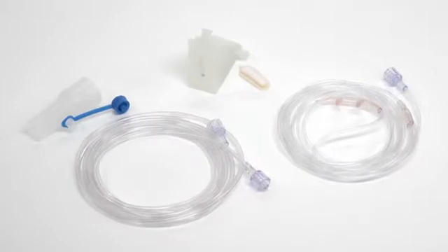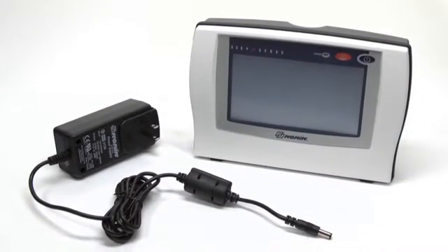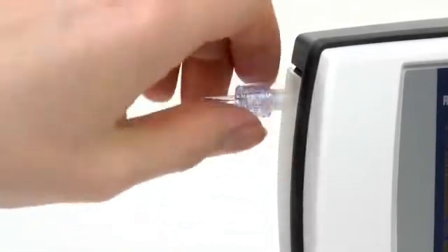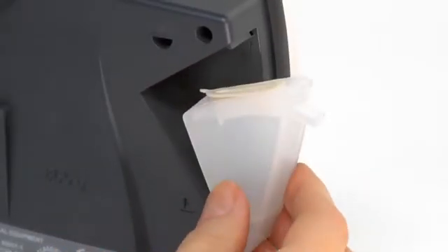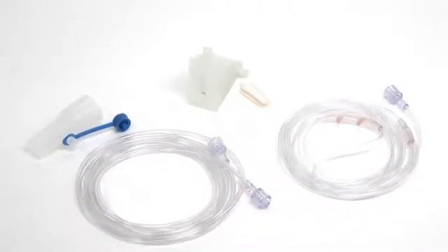All operations are performed on the touchscreen display. Setup consists of a monitor, moisture trap with filter, nasal cannula or T-connector and sample line, and the power supply. Moisture traps, filters, and sample lines are single-use components and disposed of after each patient's use. Start each patient with a new sample line, moisture trap, and filter.